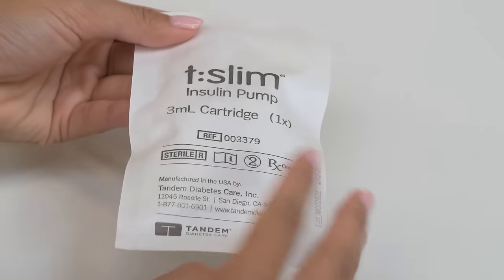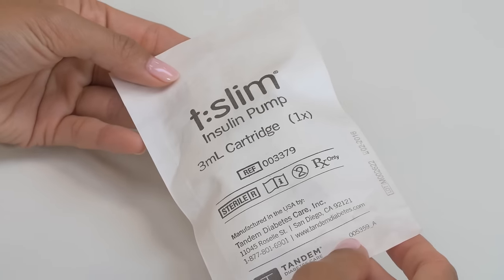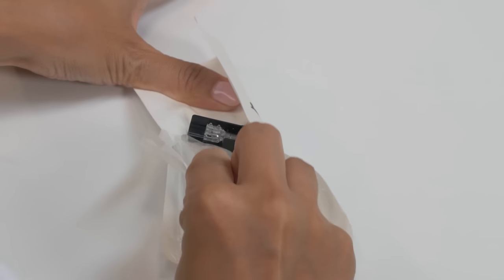First, examine your cartridge and packaging for any visible damage. If you suspect the cartridge may be damaged, do not use it. Now, open the package and remove the cartridge.